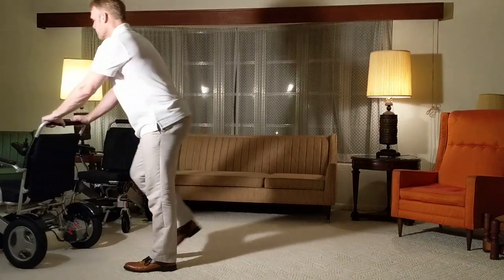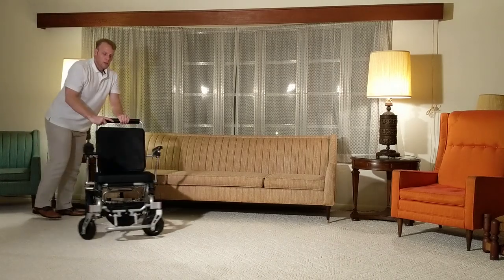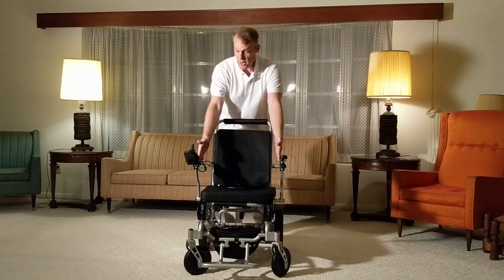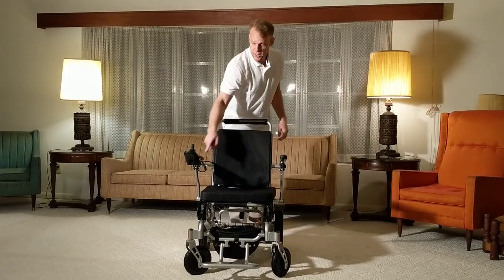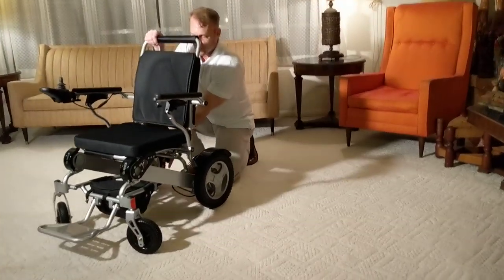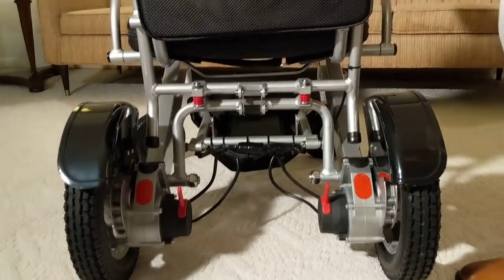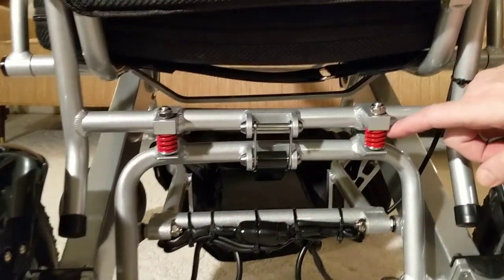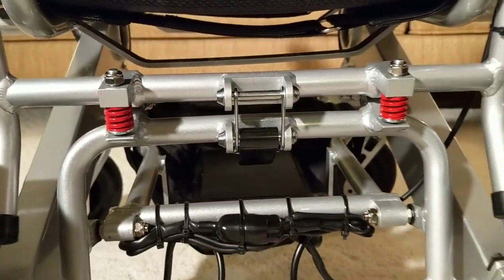Finally, let's take a look at perhaps my favorite chair — the Electra 7 wide version. This chair has a full 21 inches of space in the seating area, making it very comfortable and easy to work with. It has flat-free tires and wheel guards. This is the Dura-Shock system, brand new with the Electra 7 folding power wheelchair — look at the weld points in this chair, such a beautiful piece of machinery.